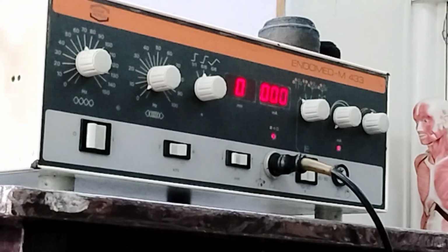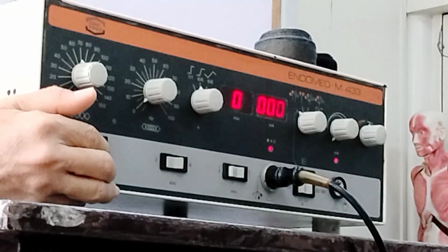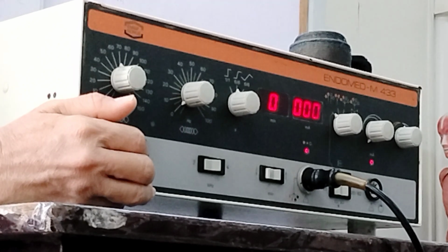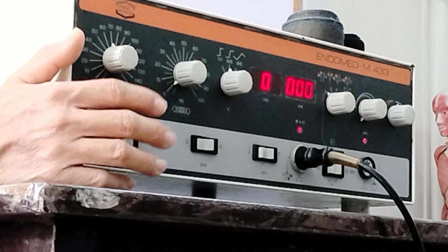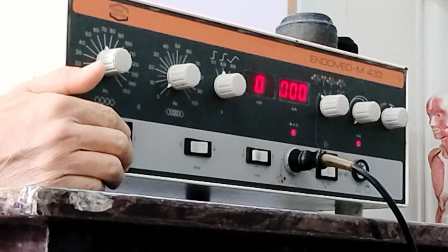So therefore, you have to give a stimulus that is more aggressive so that you can really mask or cover up the pain there. So when I said during chronic, it should be more aggressive.